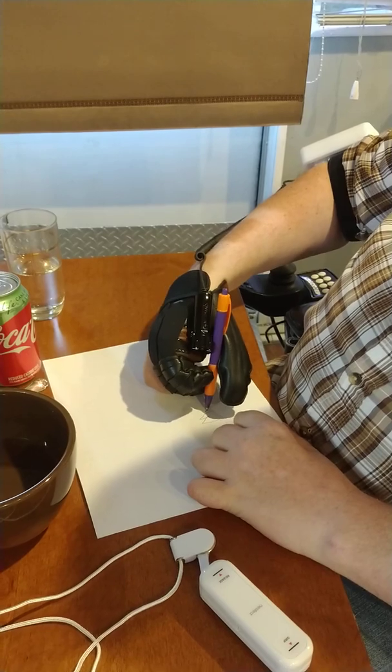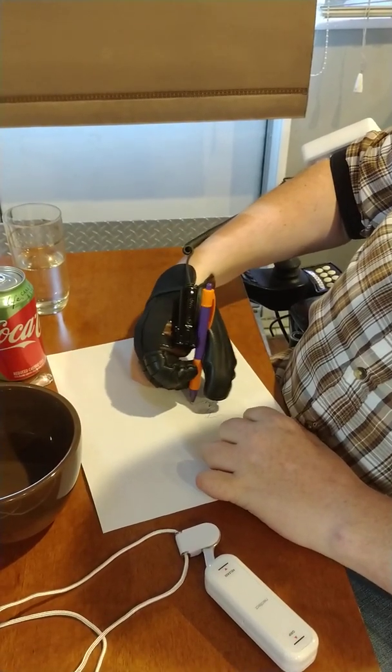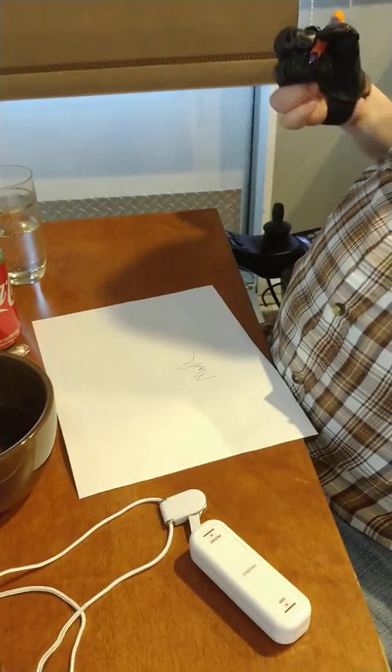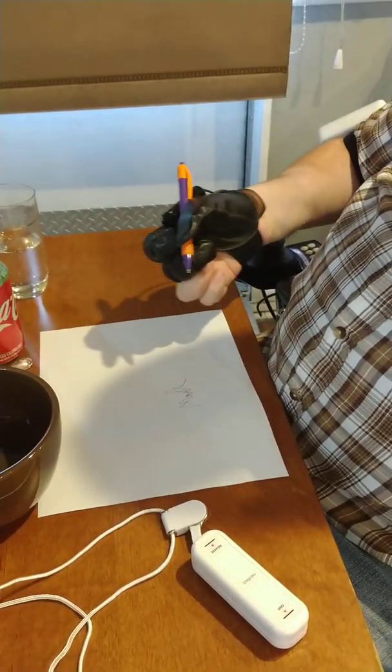I can't really see the writing under the thumb, so I can't really see what I'm writing. But I did sign my name, although rather messy. Let's see if I can do that a little better.